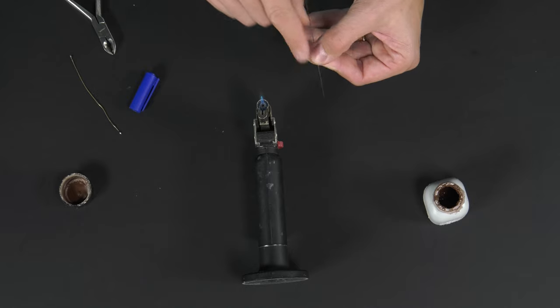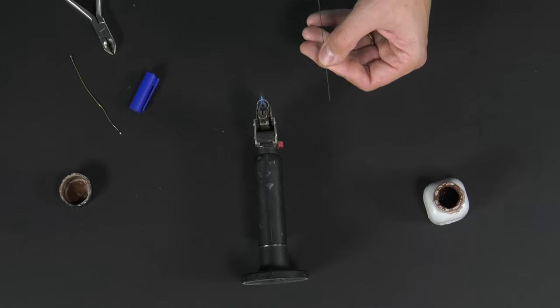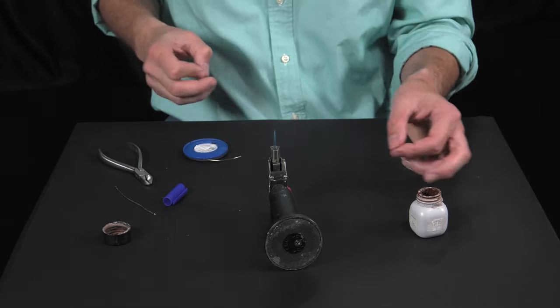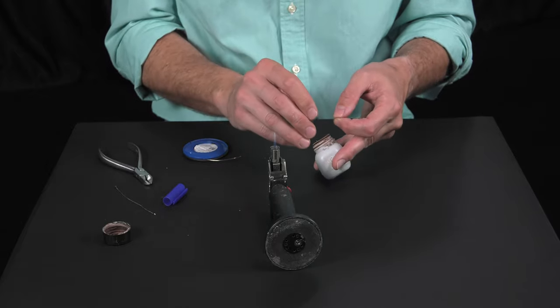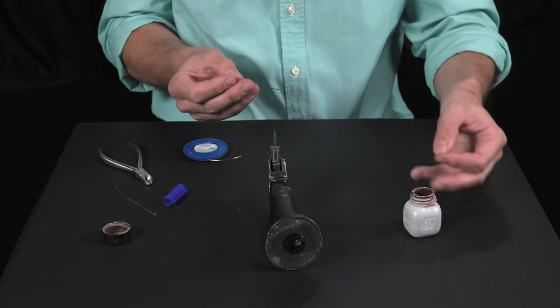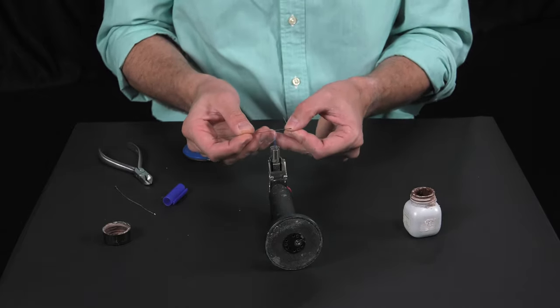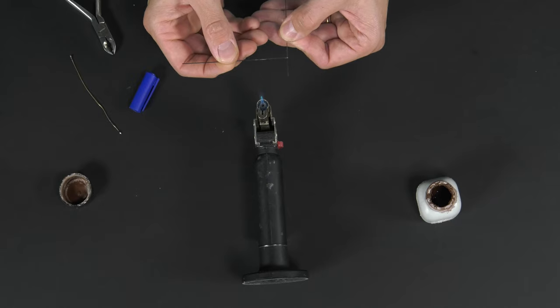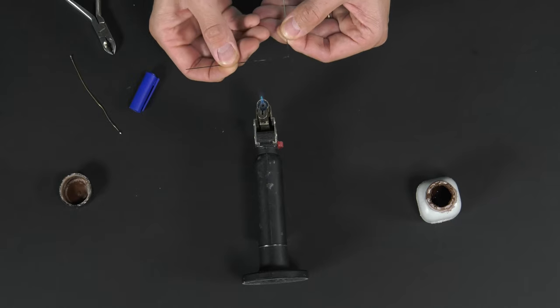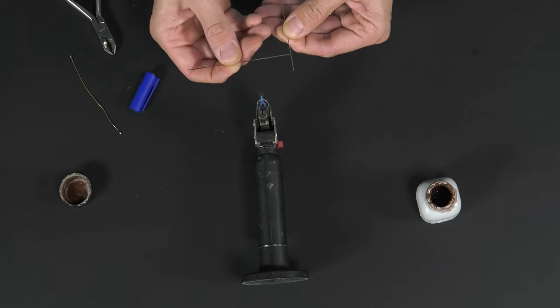Now, to guide the silver solder exactly to the mark, it's important that we dip in flux just the point we marked, because the flux will determine the point where the silver solder will be placed.